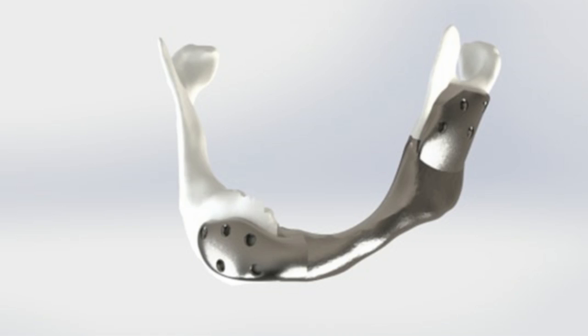Because the implant is custom-made, the jaw retains its fit, and pressure on the overlaying mucosa or skin is distributed more evenly. The researchers hope this will diminish complications and improve functional and aesthetic outcome.